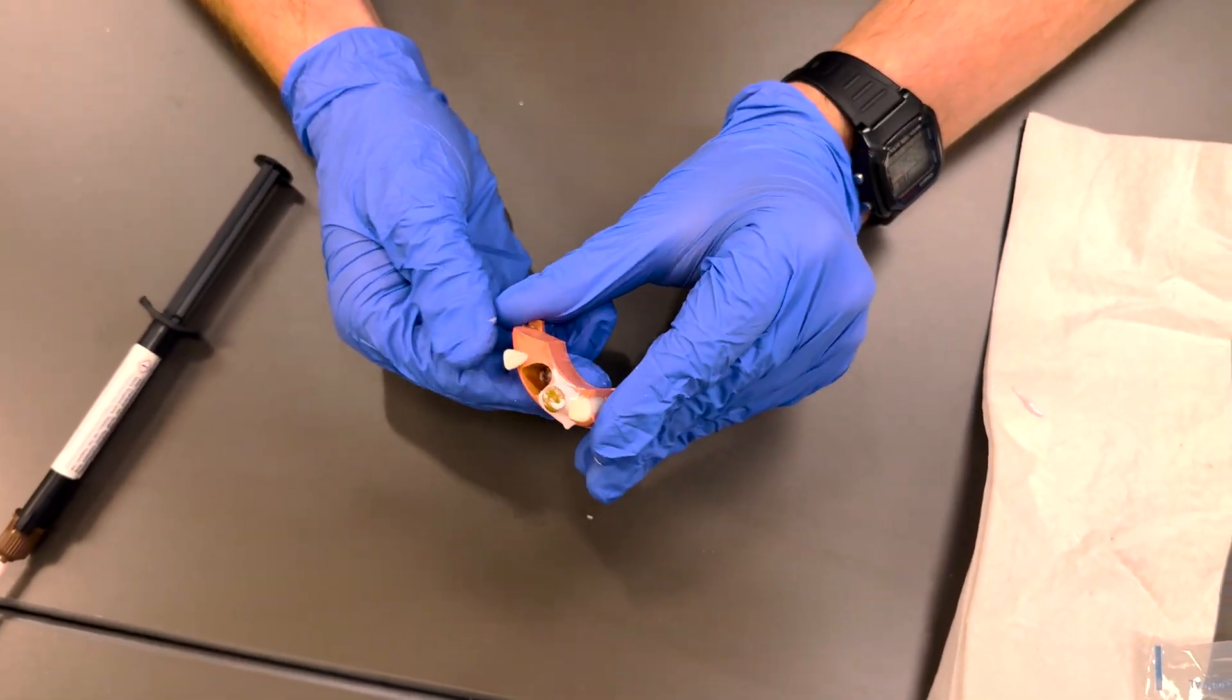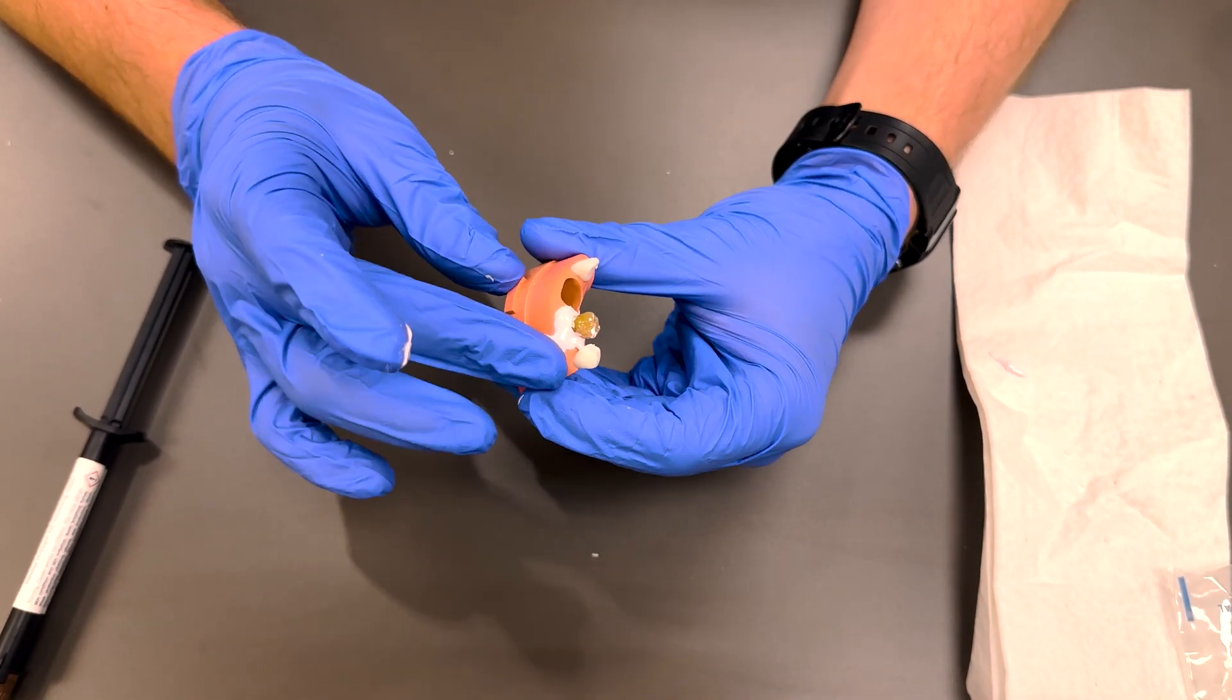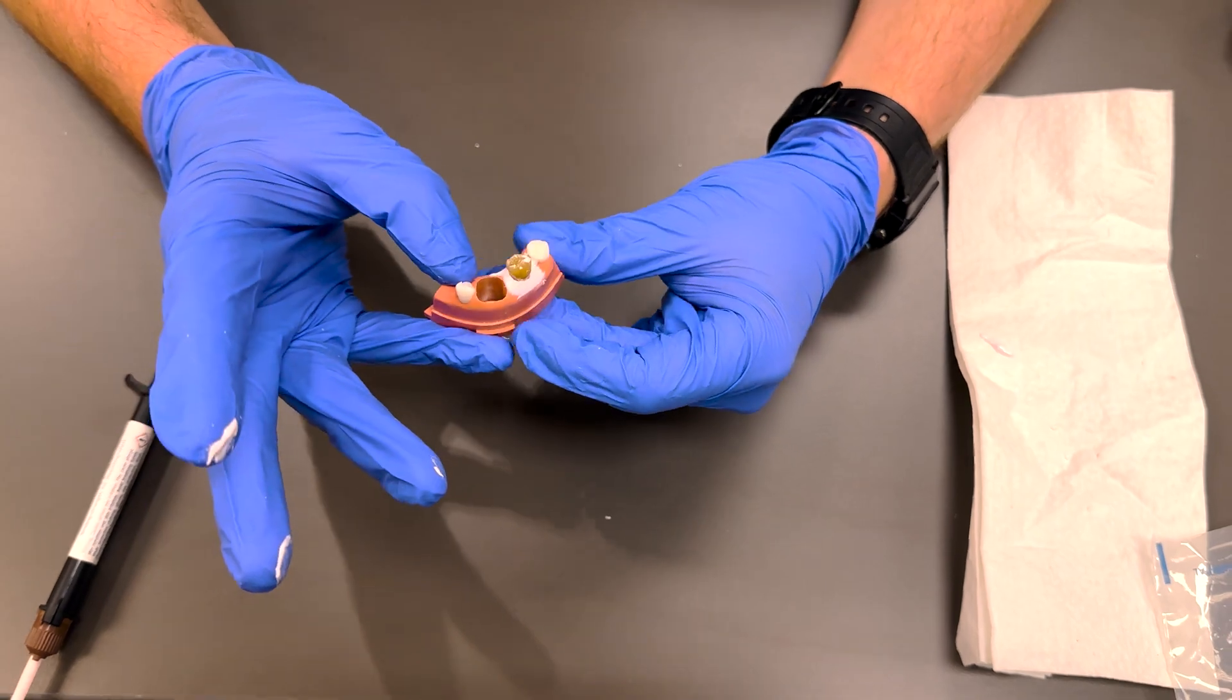You can see the entire surface is covered. What you need to do then is clean this up a little bit, but you need to let this sit and it will set over about 30 to 45 minutes.